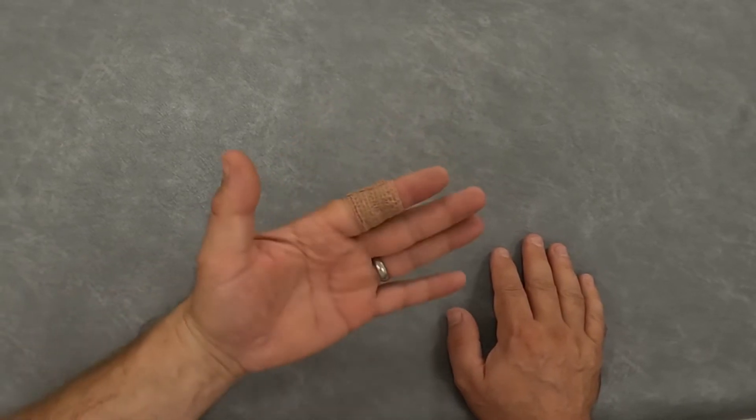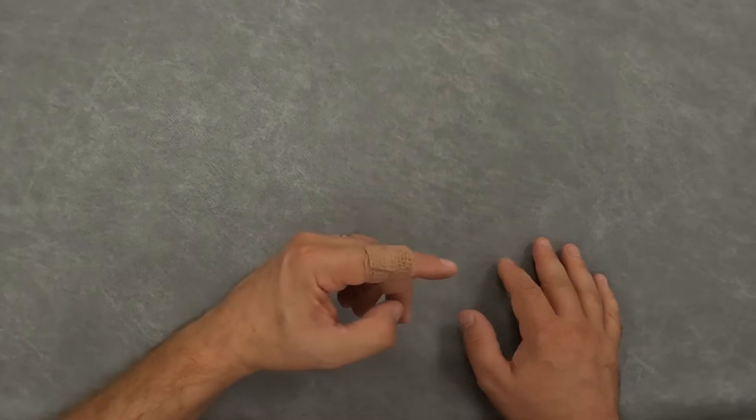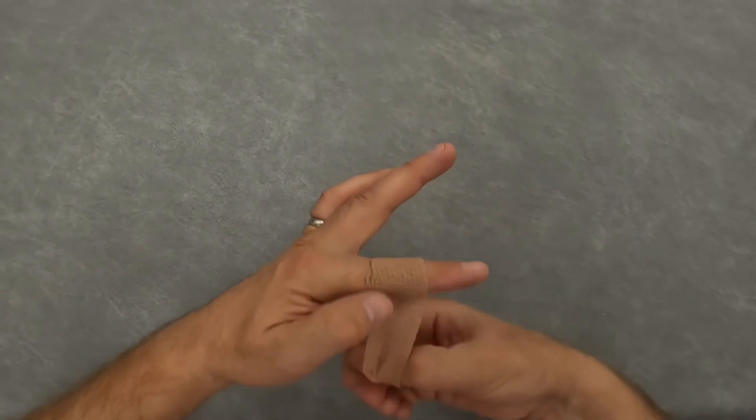I'll put a link in the video description for where you can buy Coban. It's a really useful product for people with finger joint arthritis.